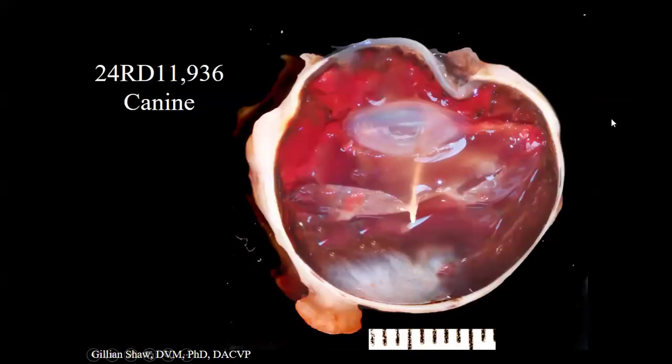This one probably won't take quite as long. This is an eye from a 6-year-old German Shepherd. The history we received was suspect trauma to the eye.